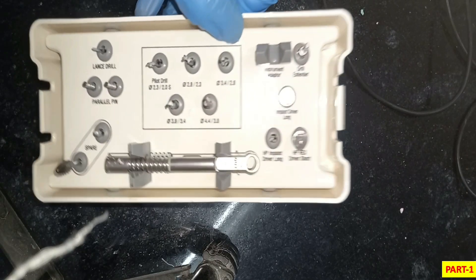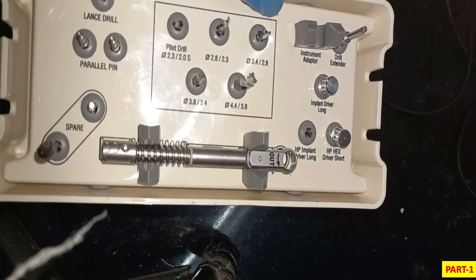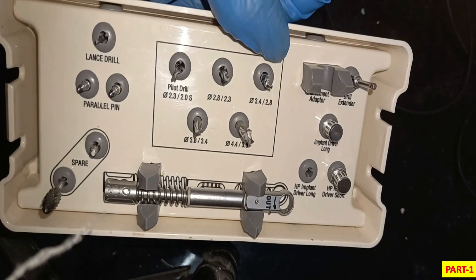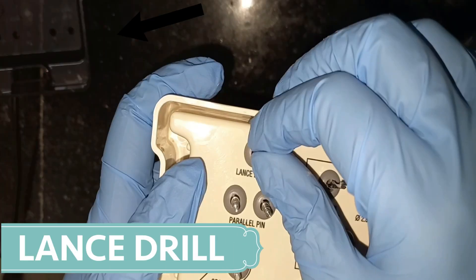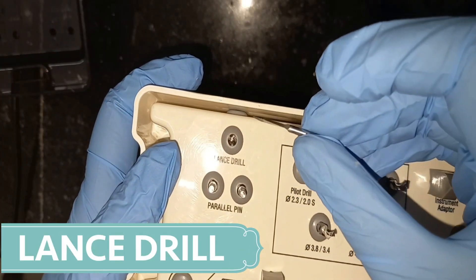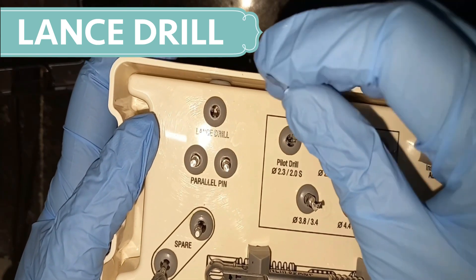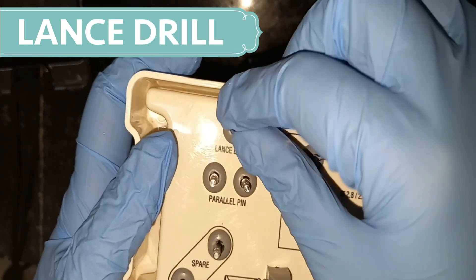As you can see in the kit, we have different components used for placing the implant, and their names are already written on the kit. The first one is the lance drill. As you can see, this is a pointed drill. It is designed to break the thick cortical bone, so this is the first drill we are going to use during the placement of the implant.